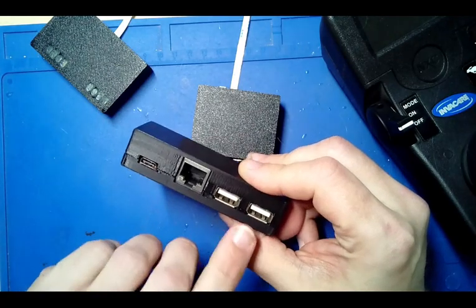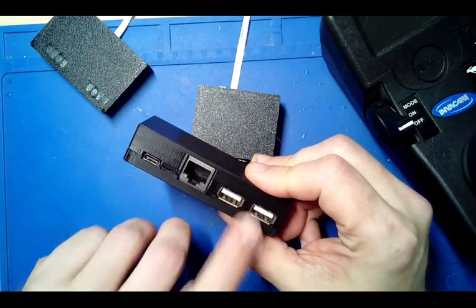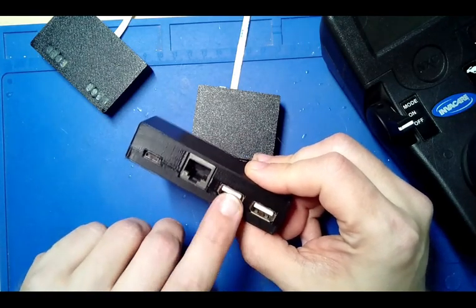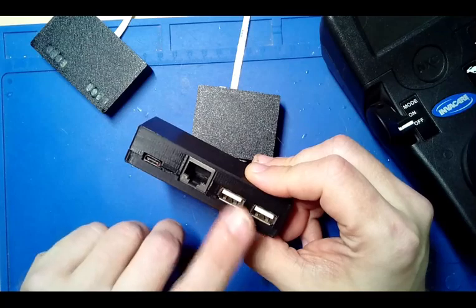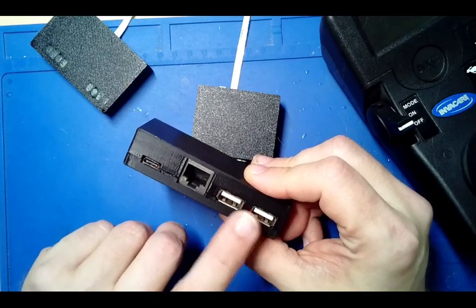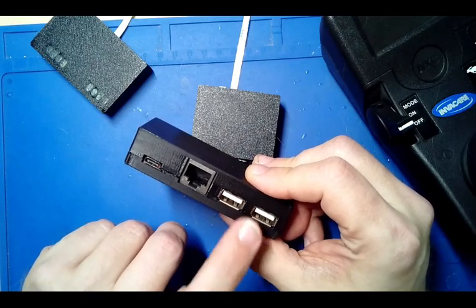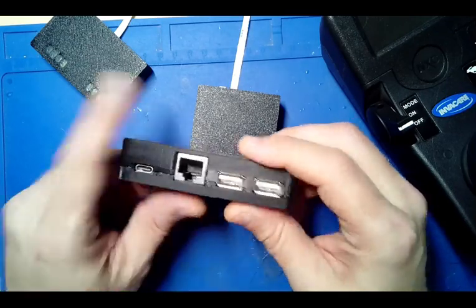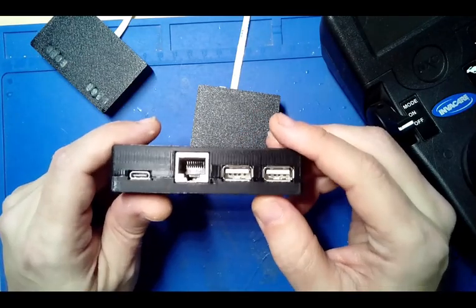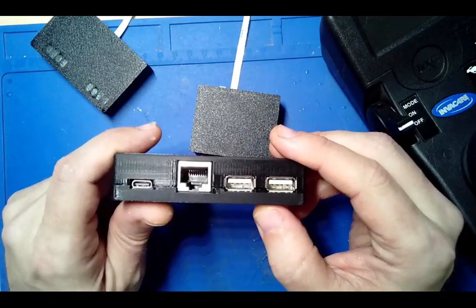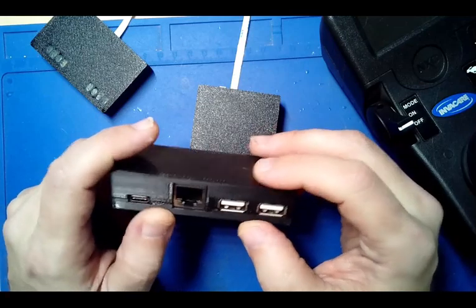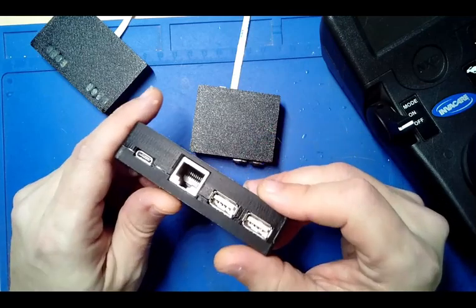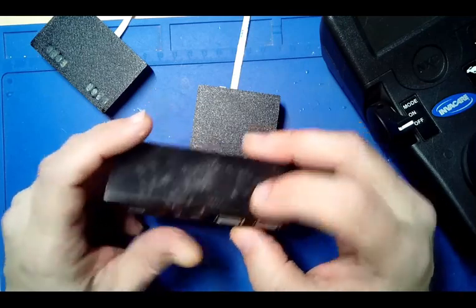And then you have your mouse and your keyboard connections here, so mouse and keyboard or combined, whichever, go here. So as before, this will be beneath the chair or in the back or wherever it's going to fit and have those cables.